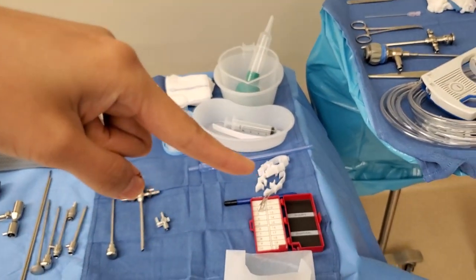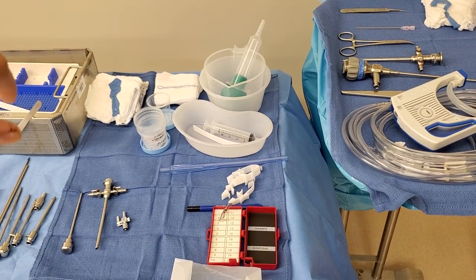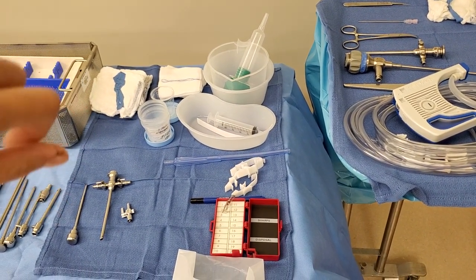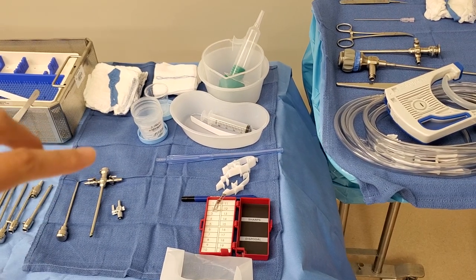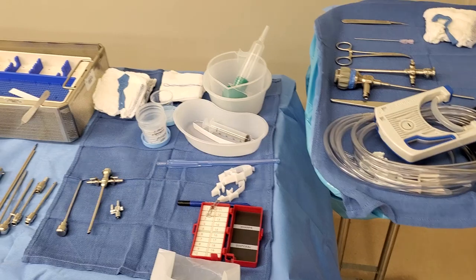These are the things that clamp to the suction so that if you're ready to unplug you can use those to clamp it out — you don't have any leaks. And then basins and kidney basins.